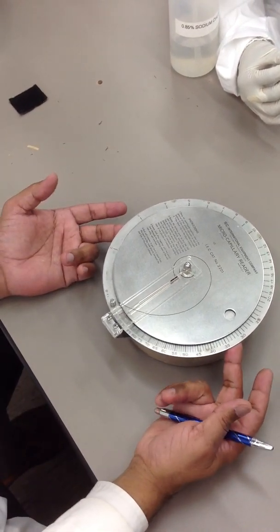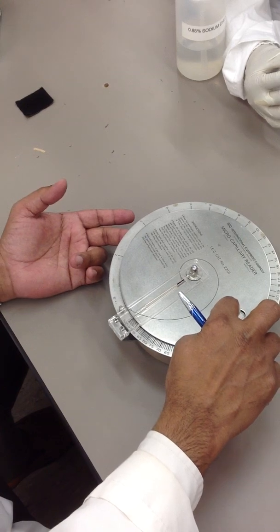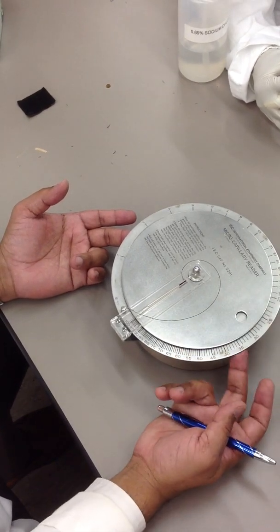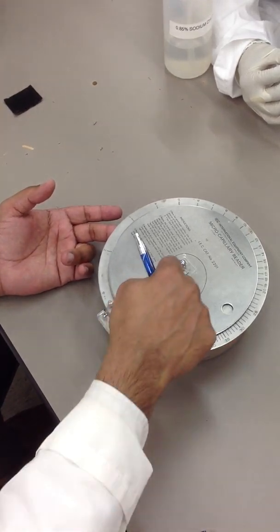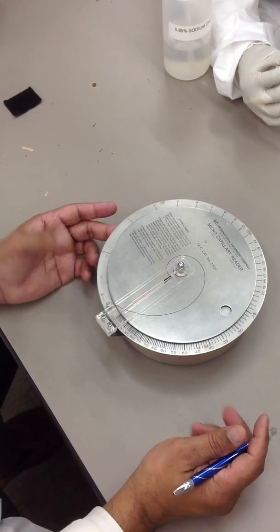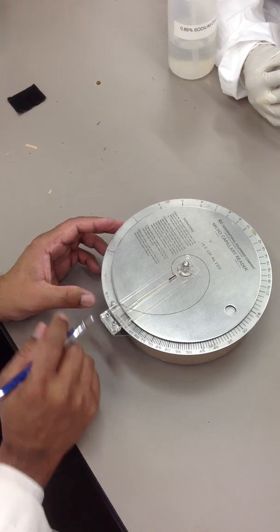All right. This has two plates on it. The top plate and the bottom plate. Okay? We always... Once we have put our tube on there, we start at 100%.